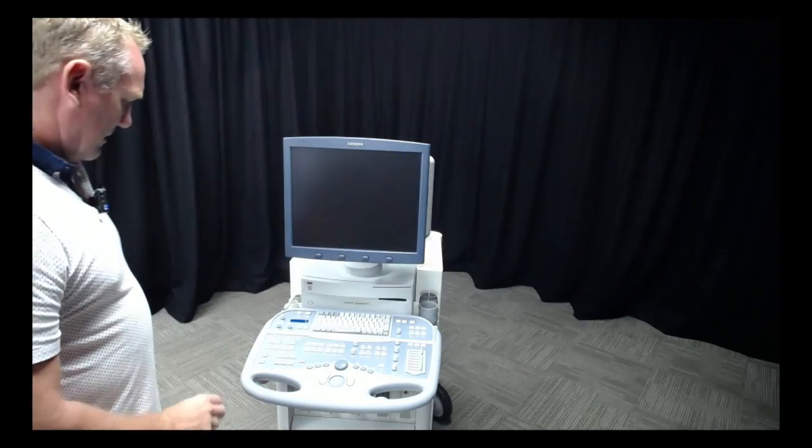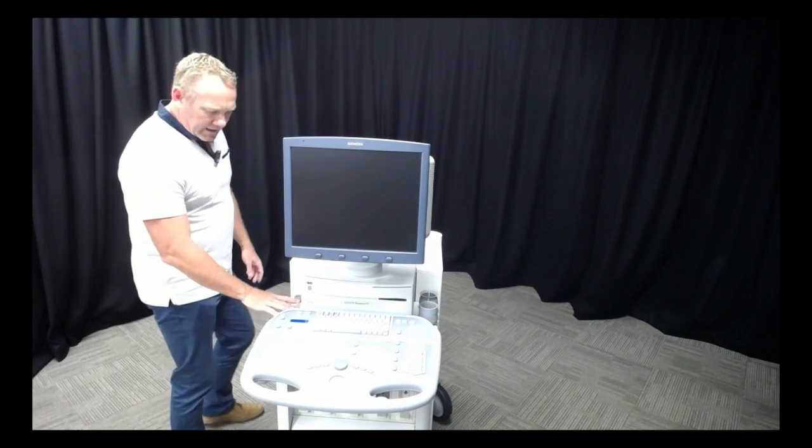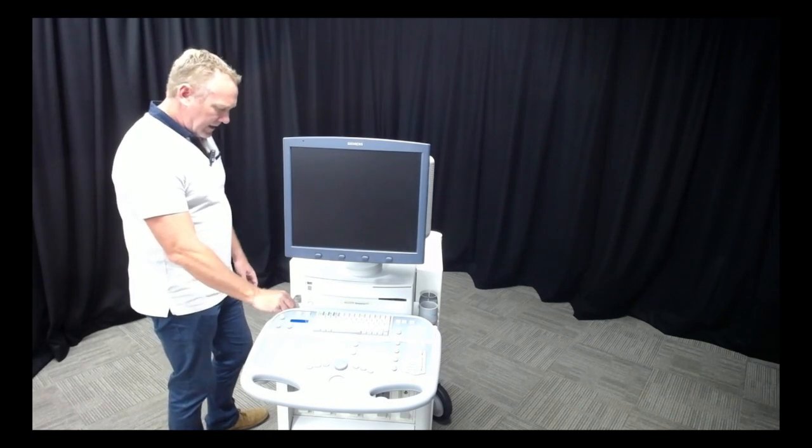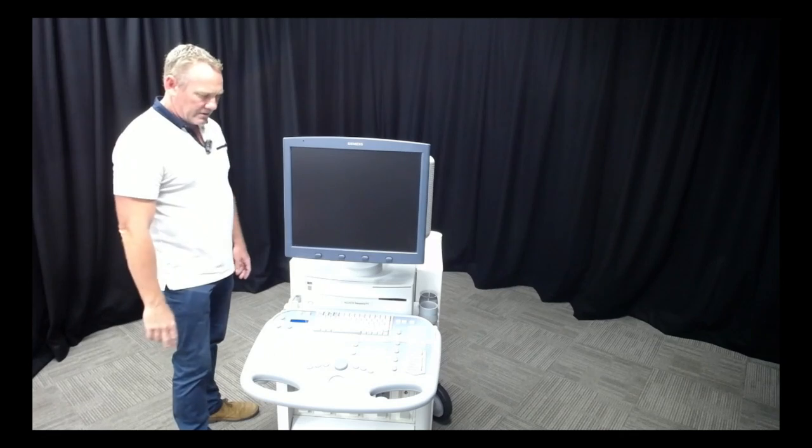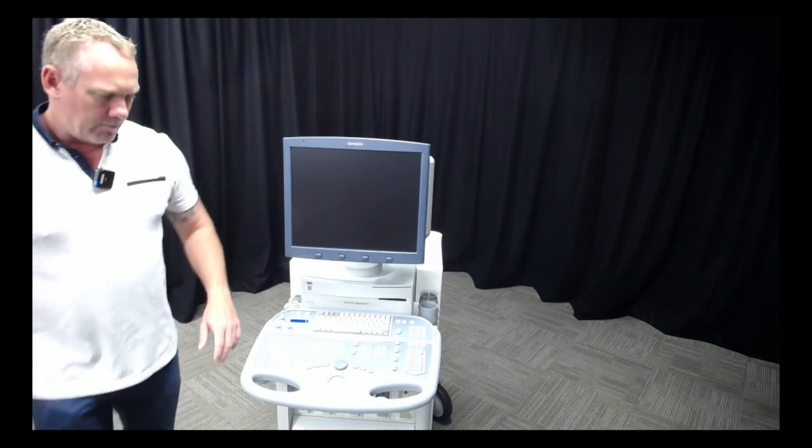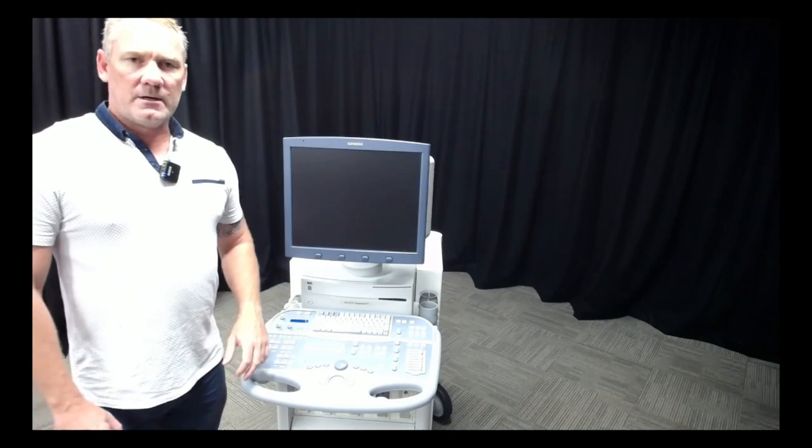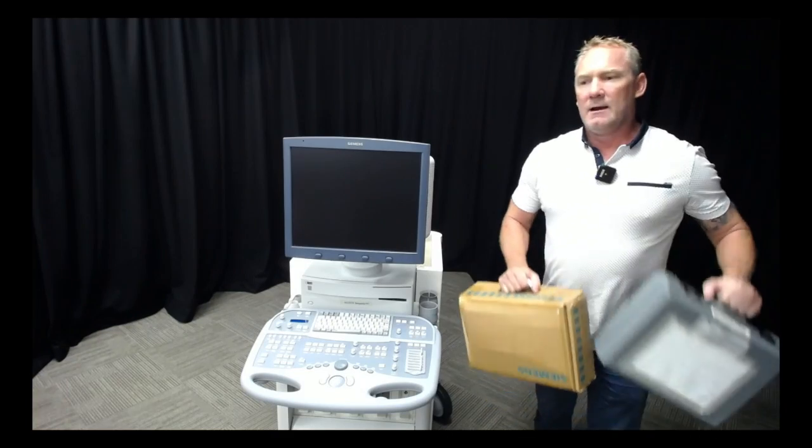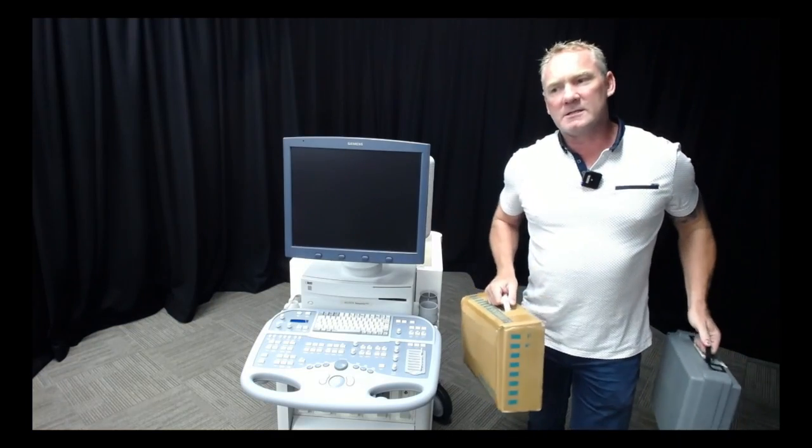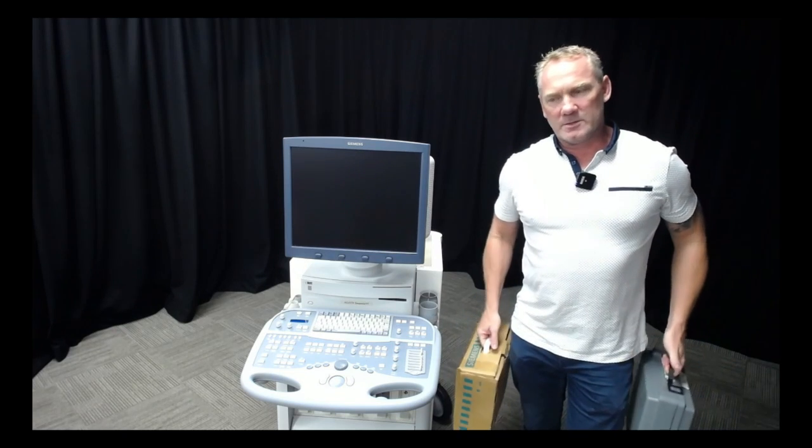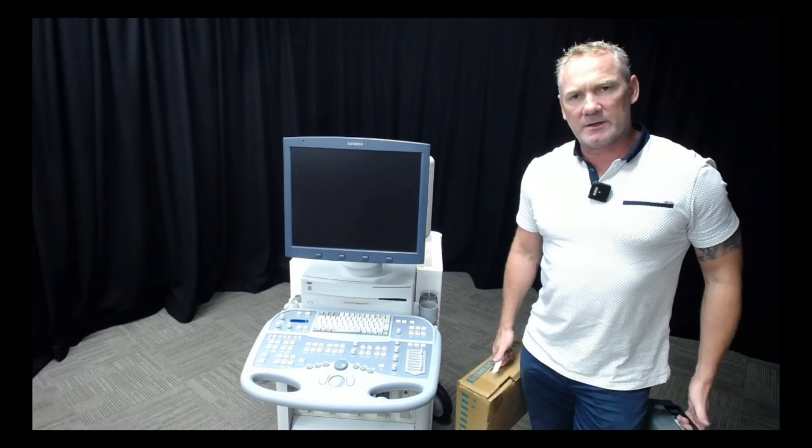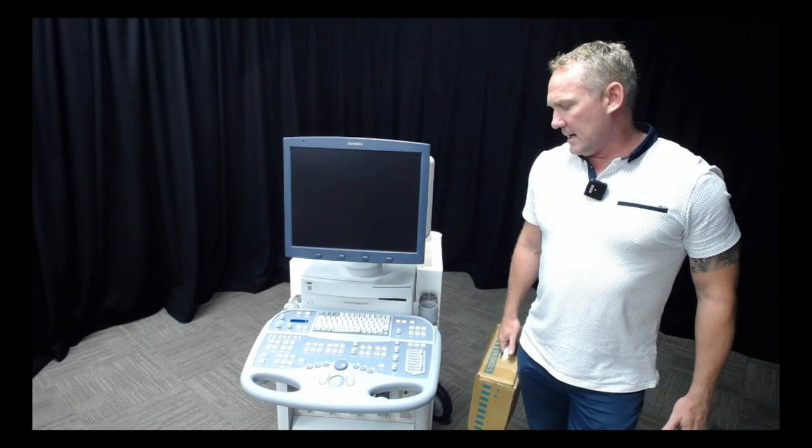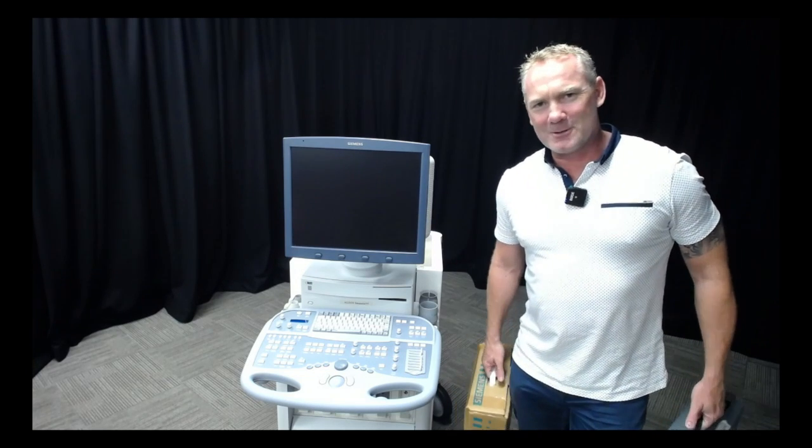I've got a little bit more cleaning to do with these little parts that click in and out and the probe holders. Other than that, I think it's looking pretty clean and tidy and ready for us to start getting into some of the more fun things. Next week we're going to pop open these boxes, have a look at all the probes we've got, and do some quality testing on the transducers.